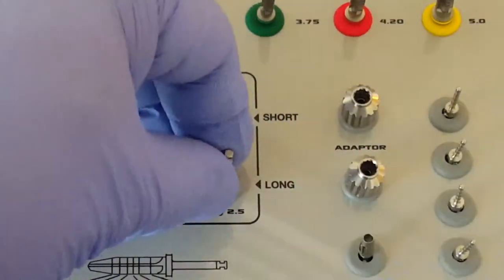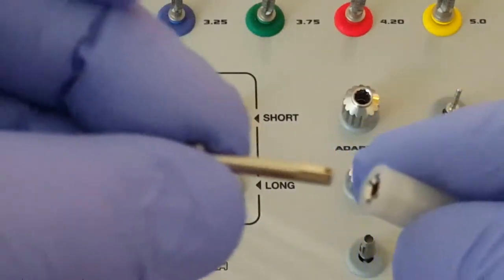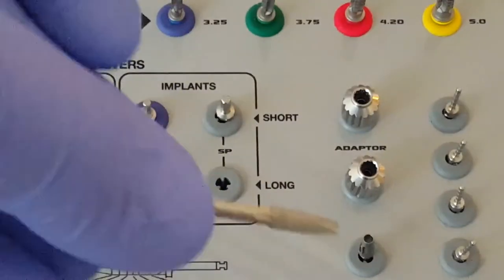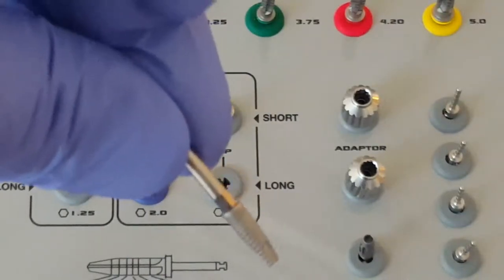We take the driver, the long but standard platform driver, and we simply insert it inside, remove the implant. And again, very retentive, it's not going to fall or drop out of place.